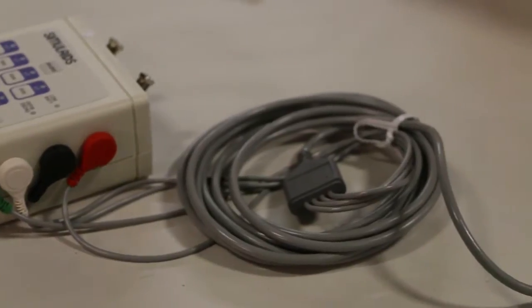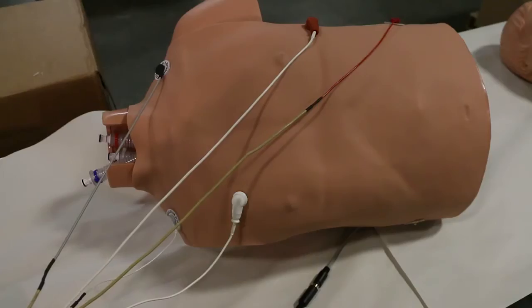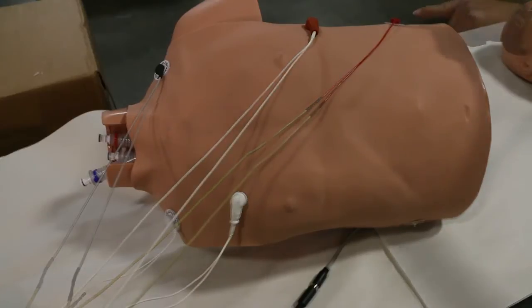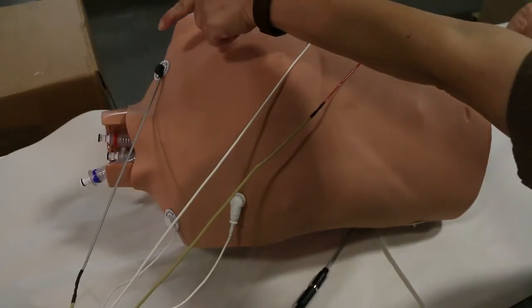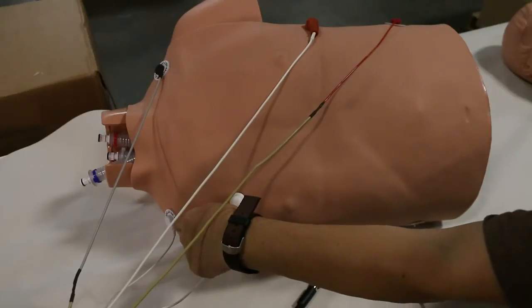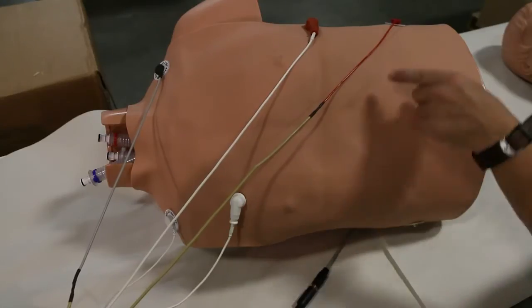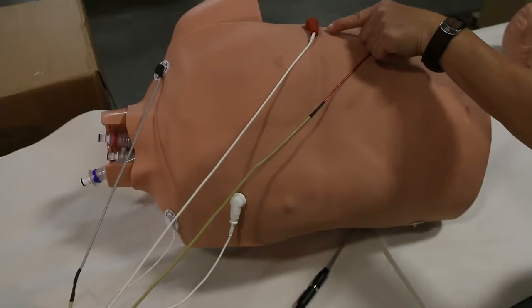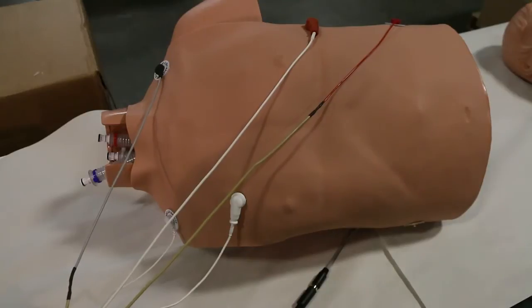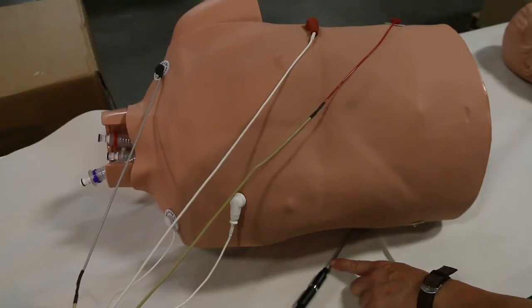This is the 102 Rhythm Generator block using the connection cable to the torso of an adult ALS simulator. This shows the torso with 3 ECG leads and 2 defibrillation leads attached from the ECG. The bottom gray cable is coming from the Rhythm Generator.